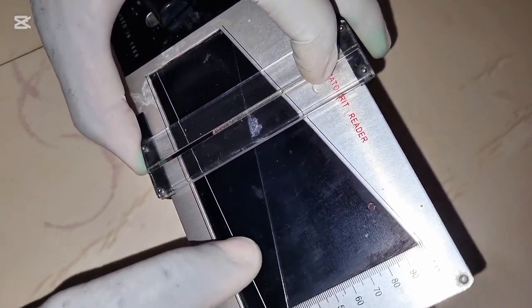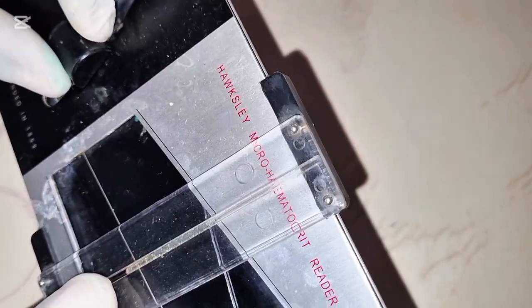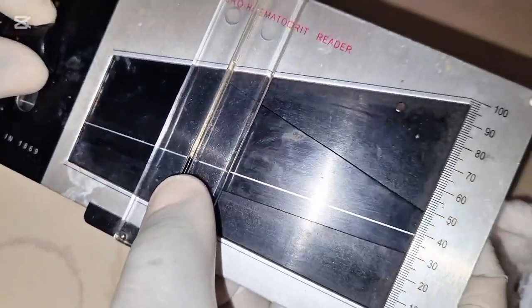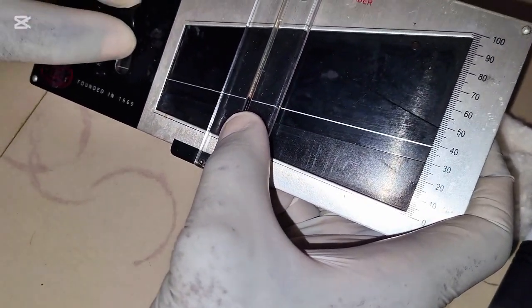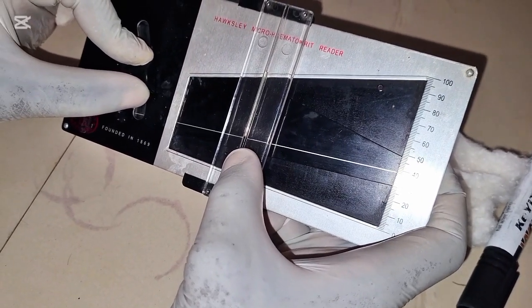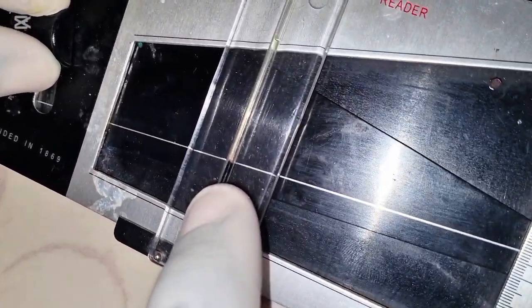So now you read. You move this white line, this is how you move it. You place this just under the buffy coat. That's that white line I told you that is for the white blood cell. You place it just under the buffy coat. You are not measuring the buffy coat together with the red blood cell. Remember, it's the packed red blood cell that you want to check the height of. So this is how you do it.